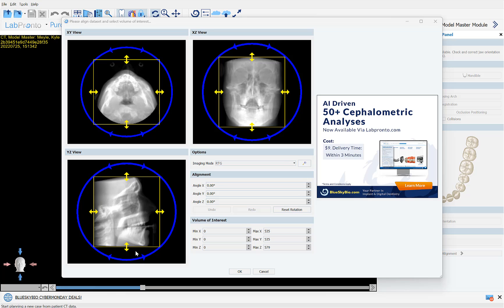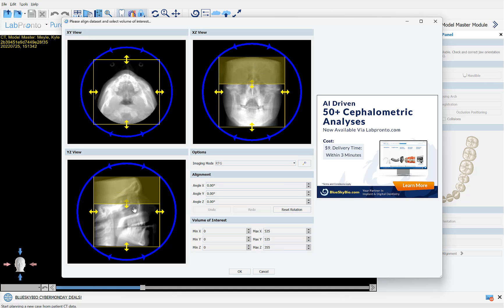On this screen, limit the relevant field of view by using your left mouse button to grab and drag the yellow borders, keeping the relevant data within the field of view.